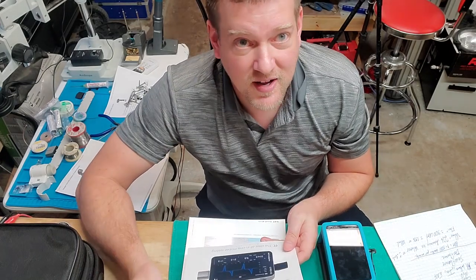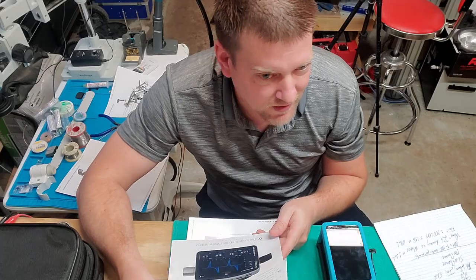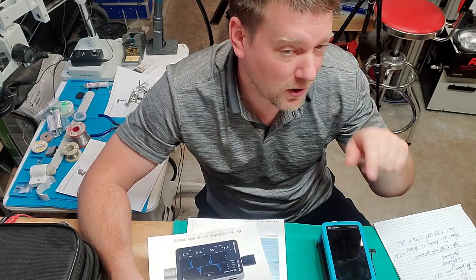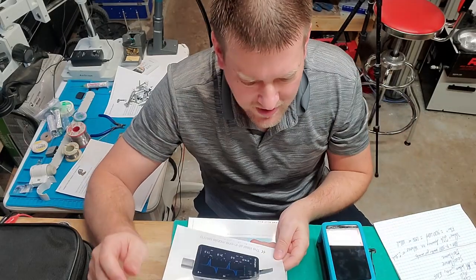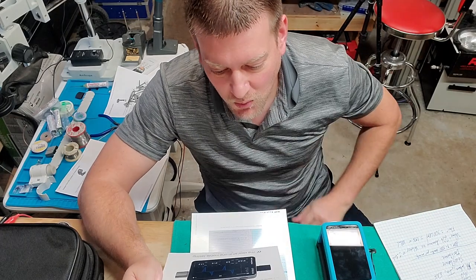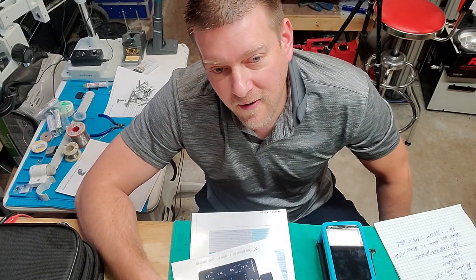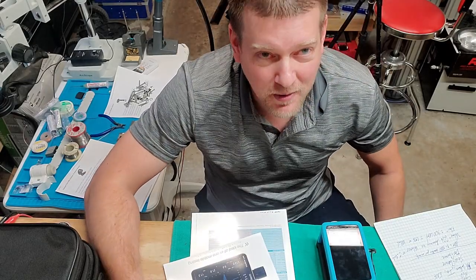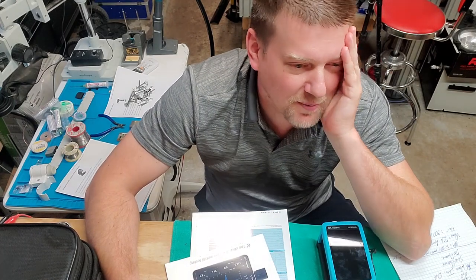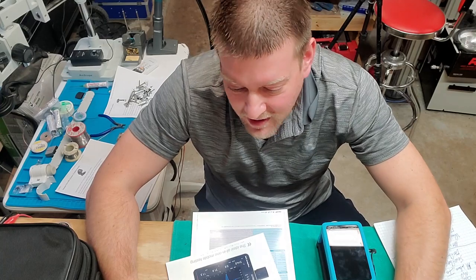It's got flow and pressure trigger settings. You can configure this device to do a whole bunch of stuff — it's not just flow and pressure, you can do other types of triggers. It can do up to 17 gas standards and up to 26 respiratory parameters. I was flipping through all the different gas standards and I was like, oh my god, there's so much I don't know about respiratory. But a lot of these standards you will never ever see.